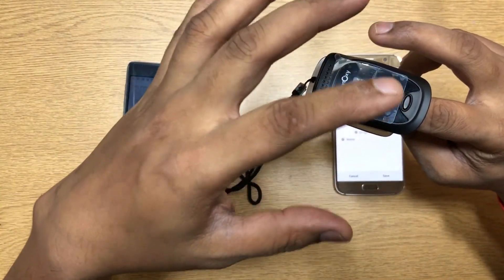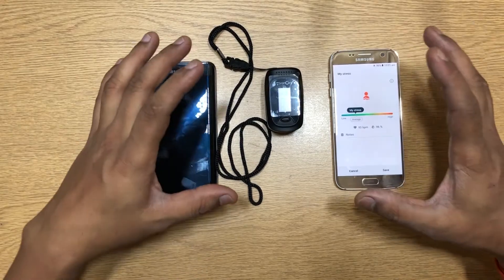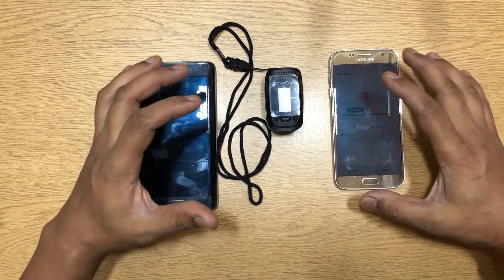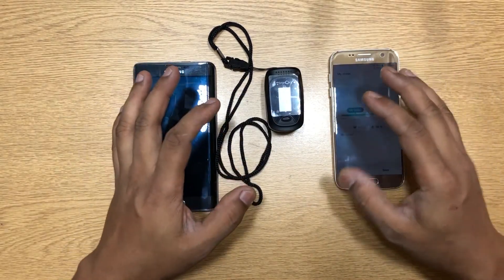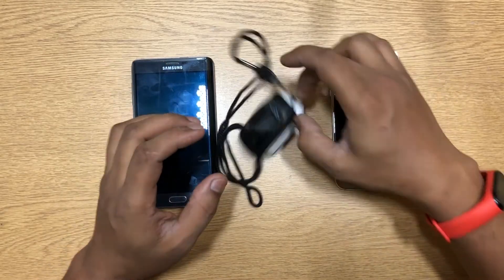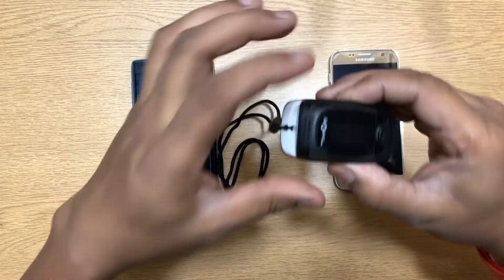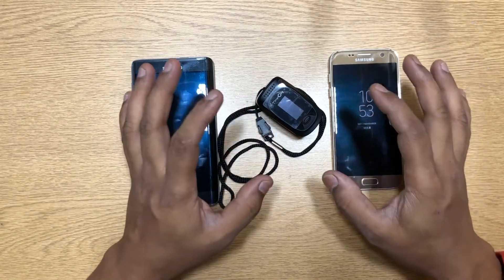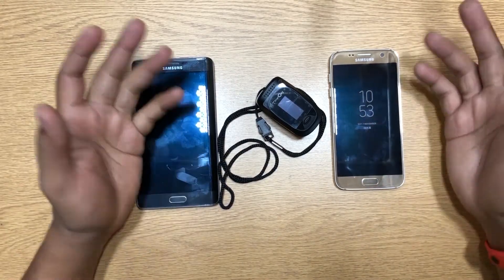There's always going to be a difference of one or two points, and that's normal. I've been using this regularly — at the gym, on jogs and walks — checking my oxygen level and comparing it with different phones. They always come close, but with phones the companies don't take responsibility for accuracy. This device is specially meant only for this purpose, so it will be more accurate than phones. I'll also be checking bands that offer continuous oxygen monitoring and making a video on that.